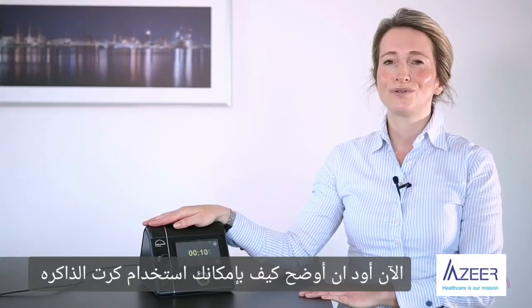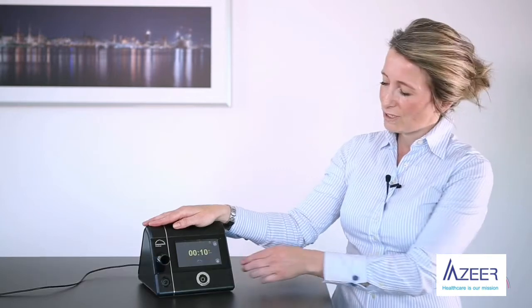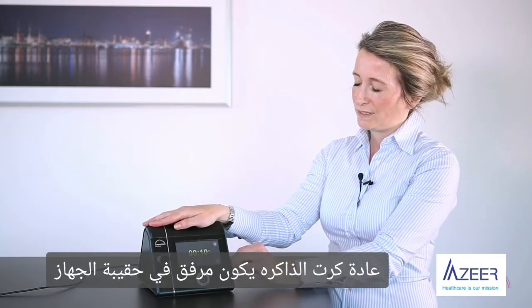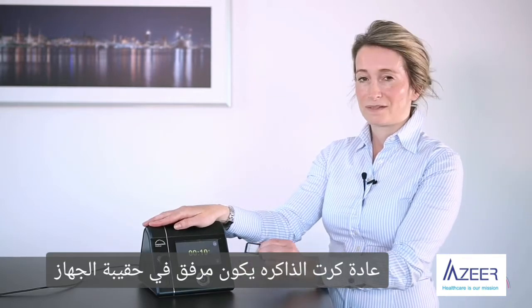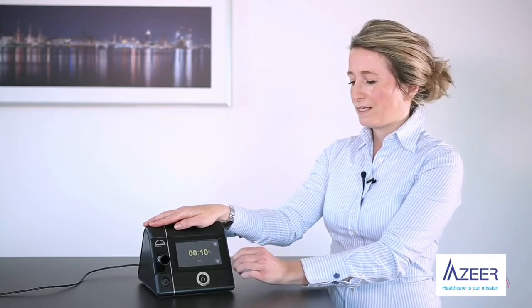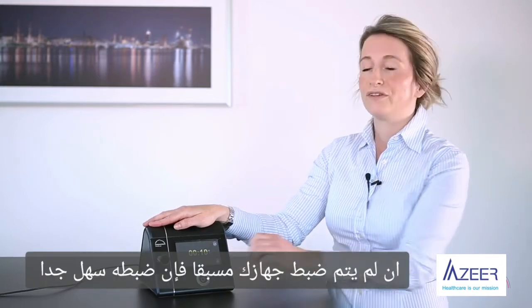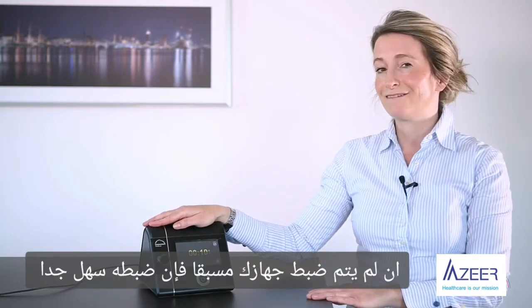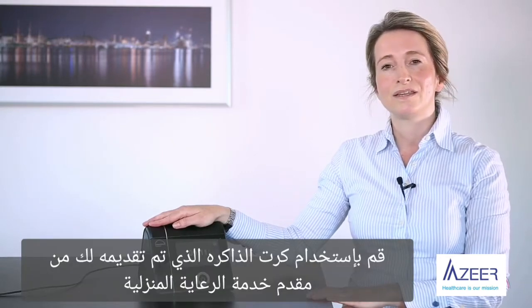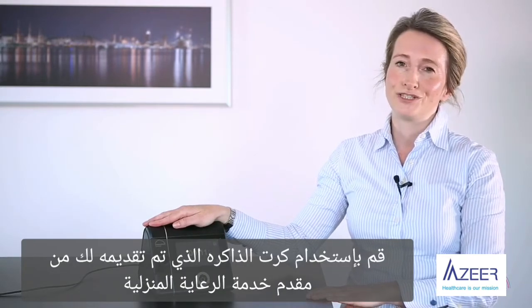Now I would like to show you how to use your SD card. Usually your SD card is included in the supply schedule of a therapy device. If your device has not been configured yet, it's very easy to do so. Use the SD card that your home provider has delivered to you.